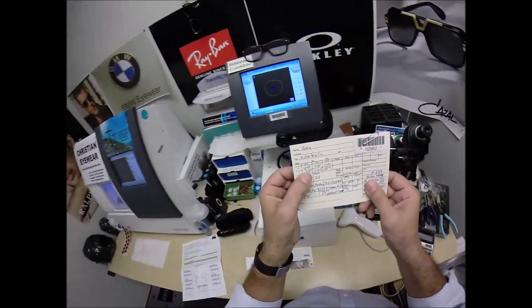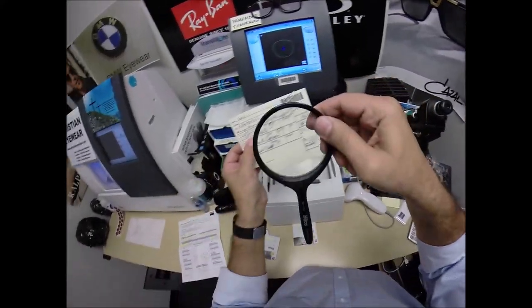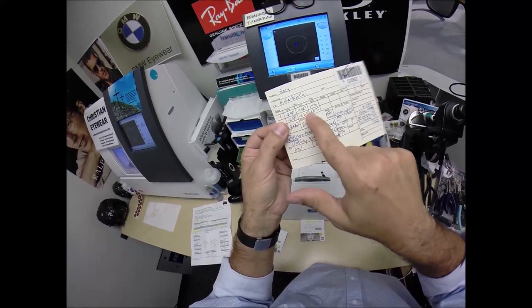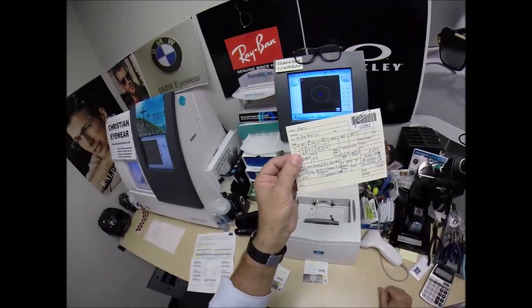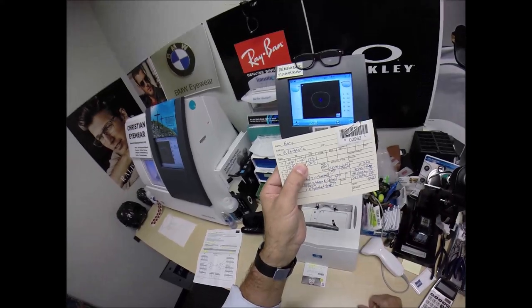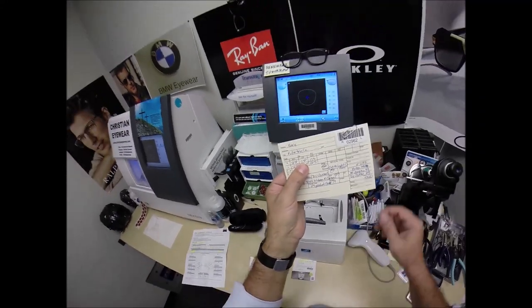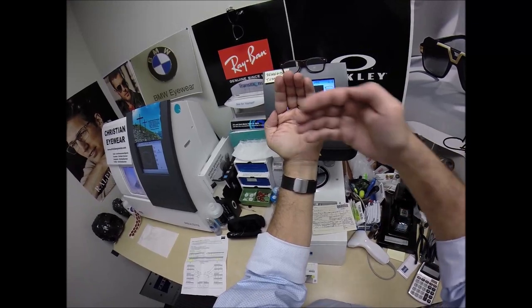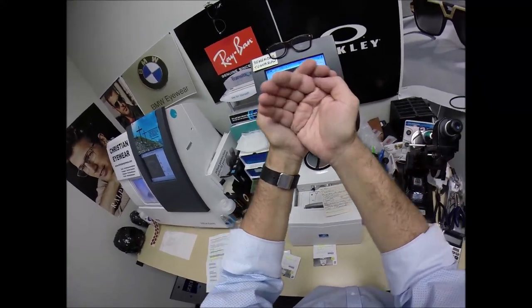The further away it gets, the blurrier. Everything is actually much too large, so that's why there's a minus sign. Your lenses minify — the opposite of magnify. Once the image is the correct size, you have one and a half diopters of astigmatism correction. Uncorrected astigmatism makes sixes and eights look alike, or the letters P and F. Think of it as the fine tune knob, and we're going to turn that fine tune knob to 173. You have a spherical component of your prescription which is minus 250. Ninety degrees away you have a steeper curve, and it's how we line those two curves up to make everything nice and crisp. A straight line is zero to 90 to 180. We're going to turn that fine tune knob past 90 to about 173, almost at the 180 meridian.